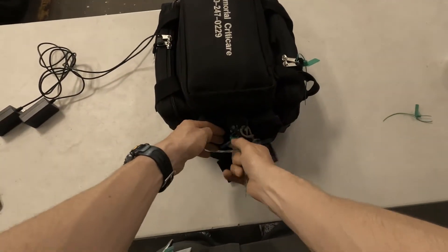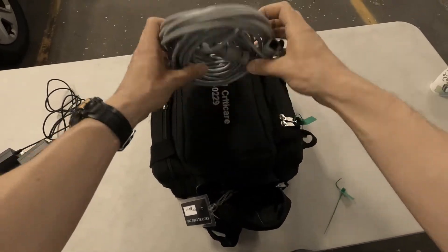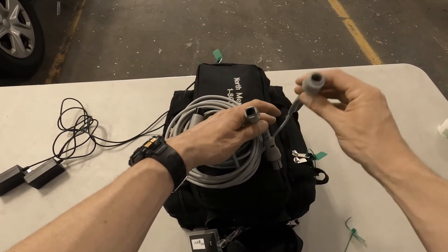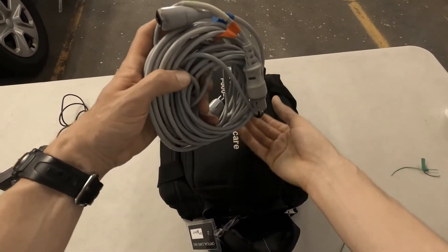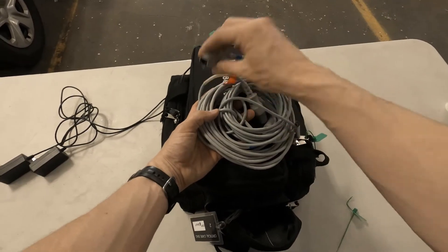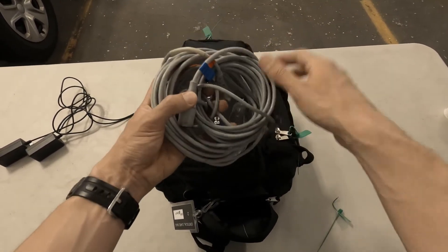In the side here are the art line cables. There were a couple of instances where we ran into issues with two of the same kind. So it should be one ethernet-type cable and one half-moon-type cable. I've put red tape on both ends of the half-moon and blue tape on both ends of the ethernet cable, so the VITs know what's what. On their stocking guides it just says one with red tape and one with blue tape, but you guys can check that too.